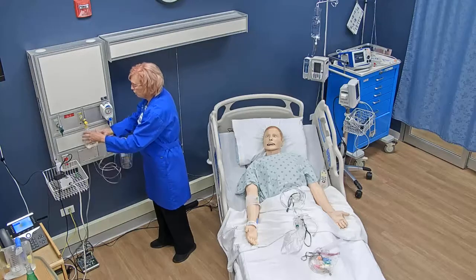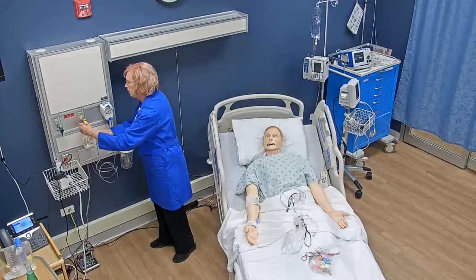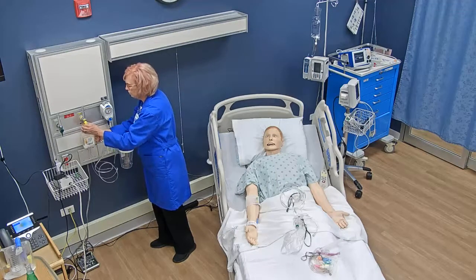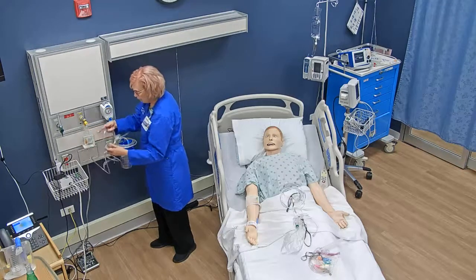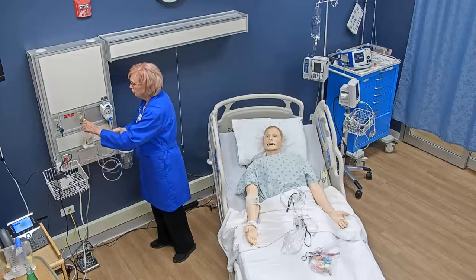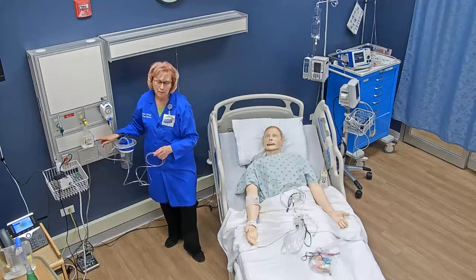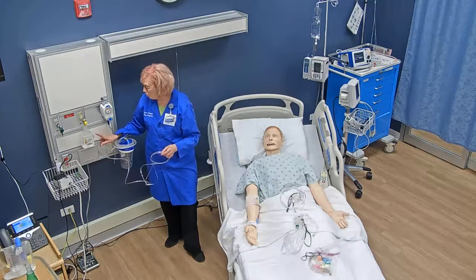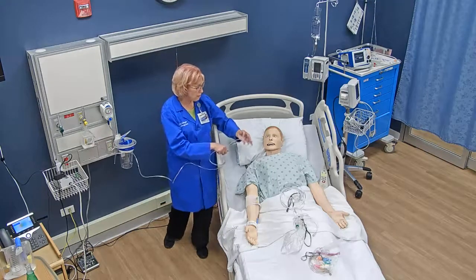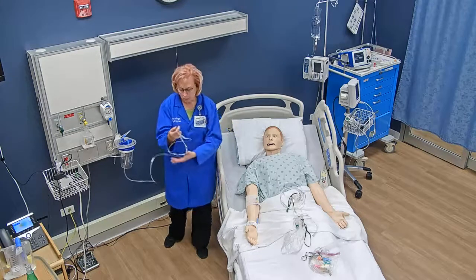Here's the humidifier — a lot of people call it the bubbler. It attaches directly to the flow meter. I screw it in place, attach my nasal cannula tubing, and then turn the flow meter on. As you can see, it's bubbling — that's why people call it the bubbler. This provides humidity so that the oxygen being administered to the patient is moist instead of dry.